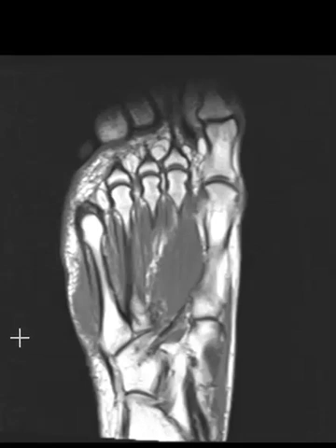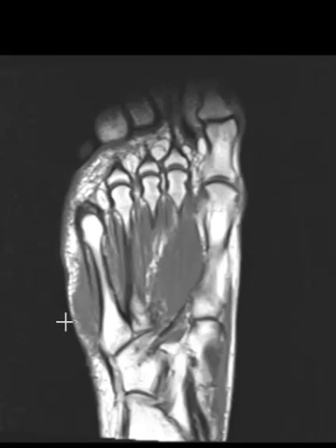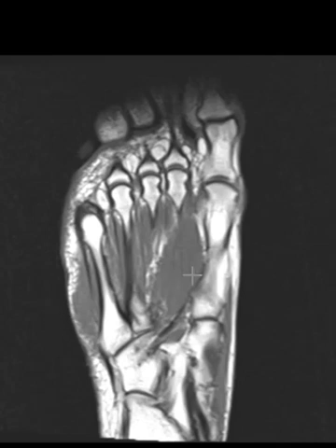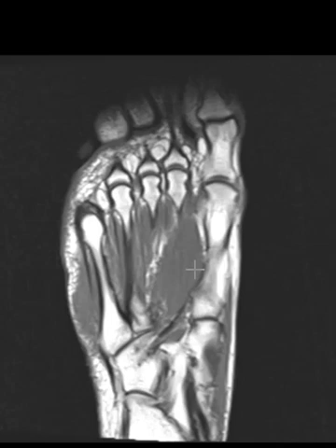Hello, this is Dr. Gay from FirstLake MRI and this is a video to show what we look for in a foot. It'll just go over some anatomy and then mention a few pathologies we look for.